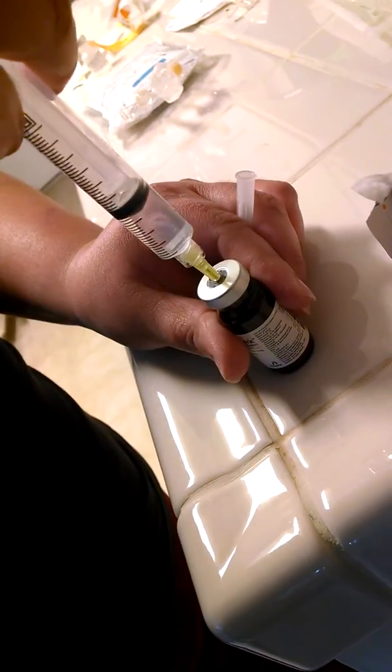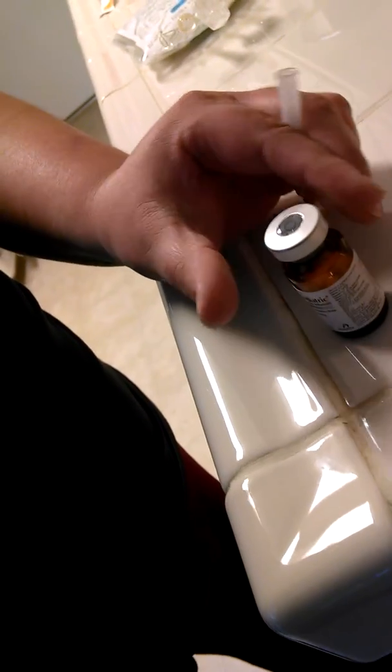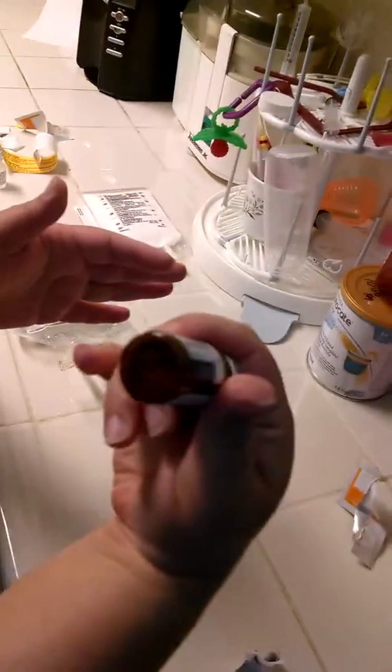We're taking that back very carefully. We're going to poke the multivitamin, pull out, and directly recap and place back in the container. Then for 20 seconds, shake and mix, reconstituting the multivitamin. Just check at the bottom — that's all mixed up.